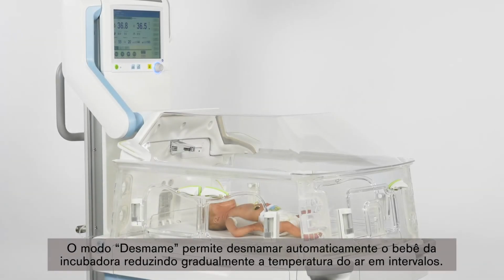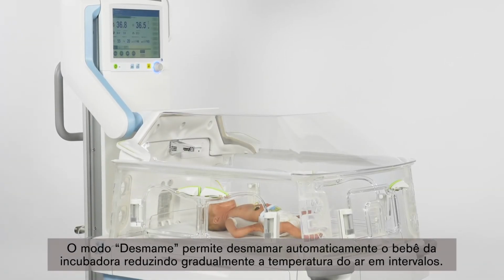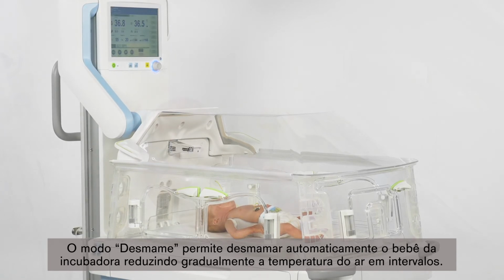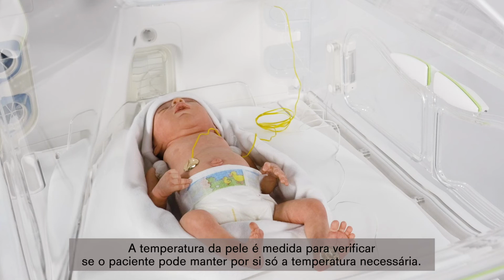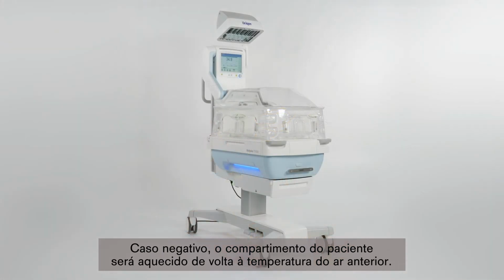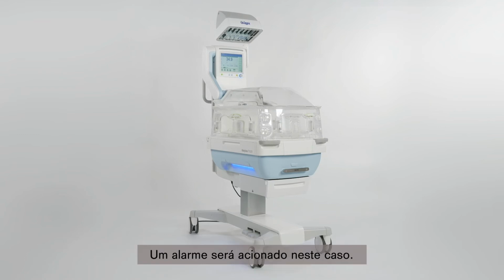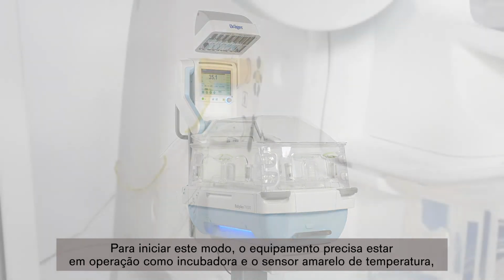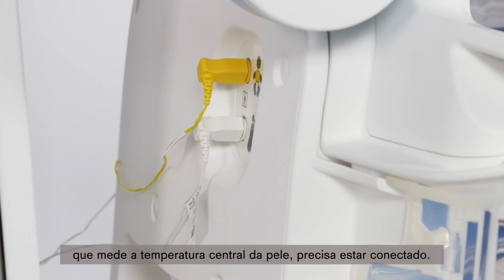The Weaning Mode provides the possibility to automatically wean the baby from the incubator by gradually reducing the air temperature in intervals. The skin temperature is measured to check if the patient can maintain the required skin temperature on his or her own. If the patient is able, the air temperature is reduced to the next step. If the patient is unable, the patient compartment is heated back up to the air temperature that was in effect before. An alarm will be triggered in this scenario. To begin this mode, the device has to be in incubator operation, and the yellow skin temperature sensor, which measures central skin temperature, needs to be connected.